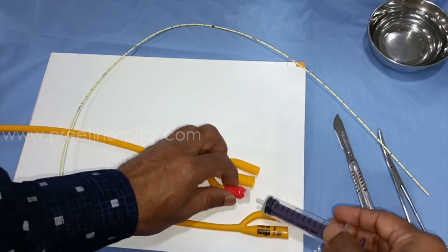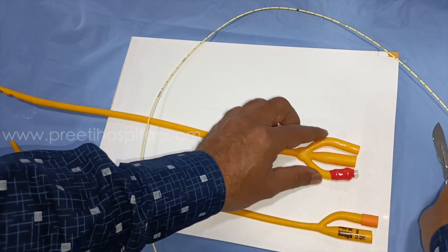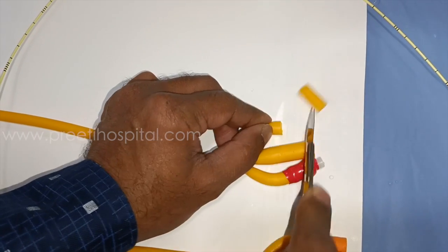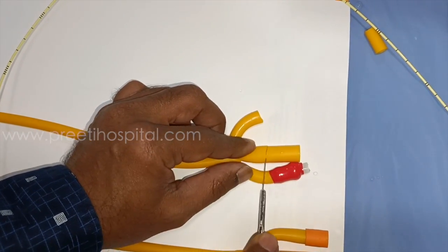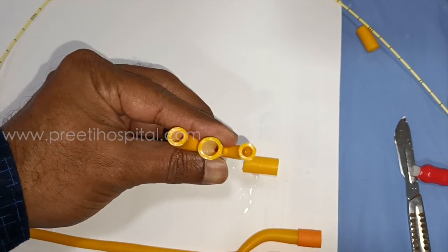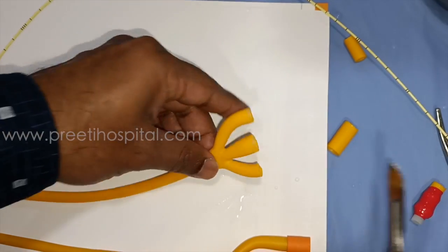This channel which is present is the smallest channel for the balloon, where the balloon is in the proximal part of the Foley's. If you cut the Foley's catheter, how it looks at the level of the most distal part of the Foley's — they will all be equal, like this. But we think that water will come, or clots will come through this hole.